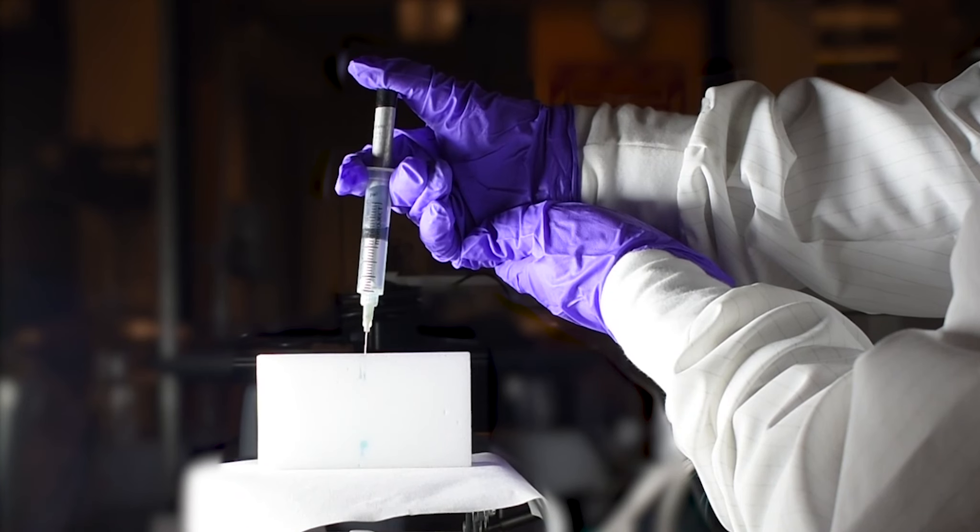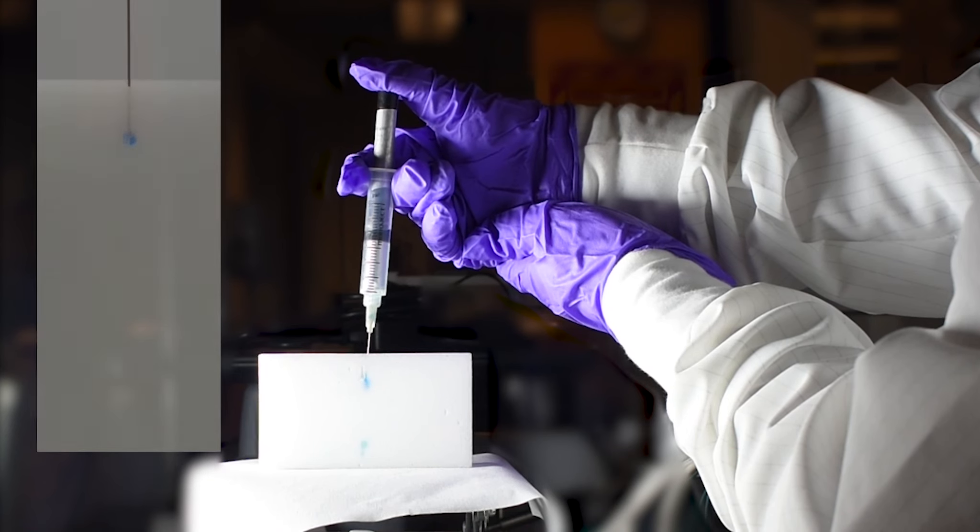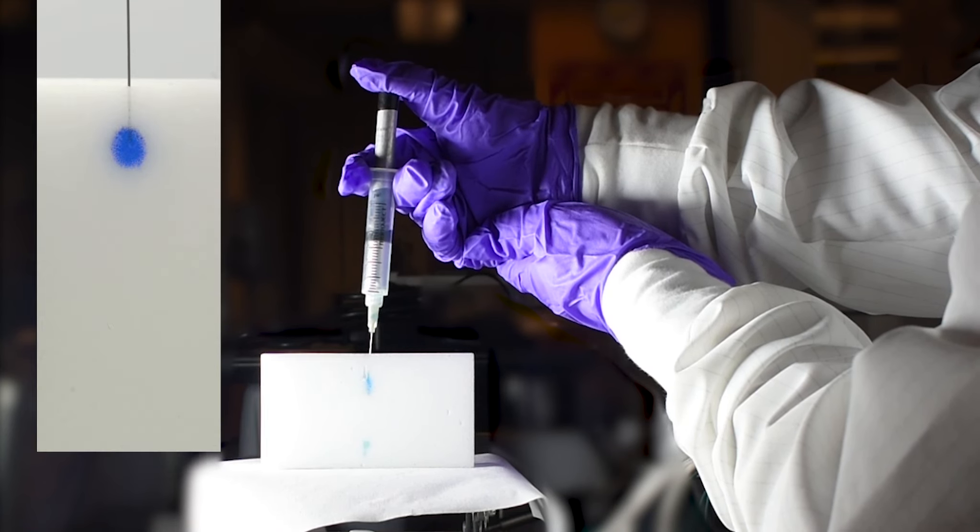However now, a team of MIT researchers have developed a simple, low-cost technology that makes it possible to easily inject high-concentration drugs and other therapies.